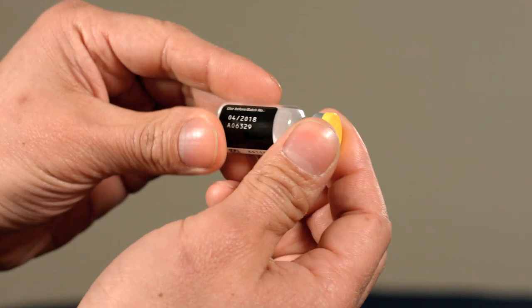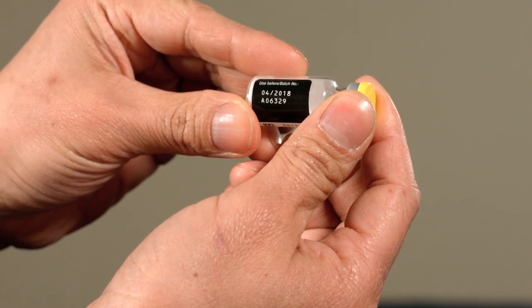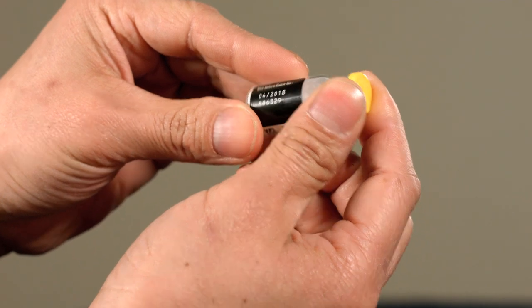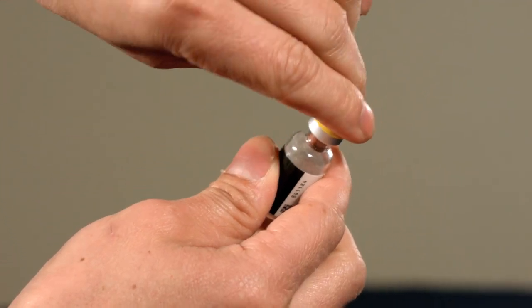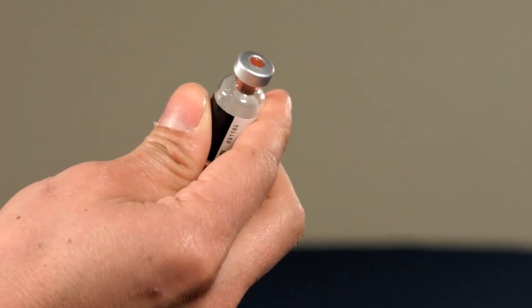Check the expiry date or best before date on the bottle. If it's expired but it's the only medication you have, use it anyway. Now lift off the yellow plastic seal.